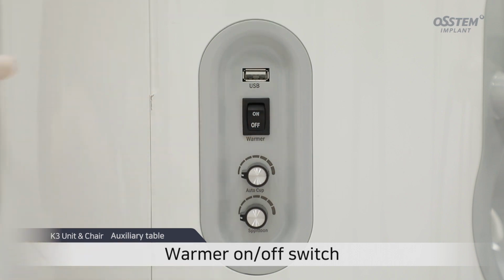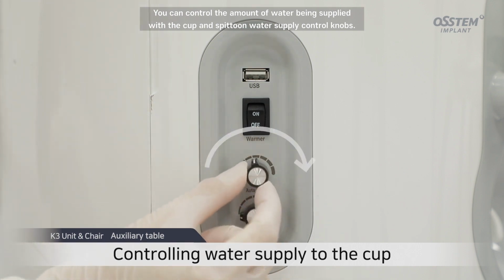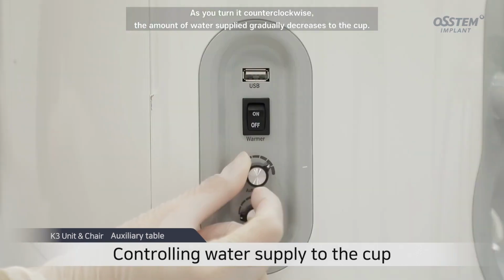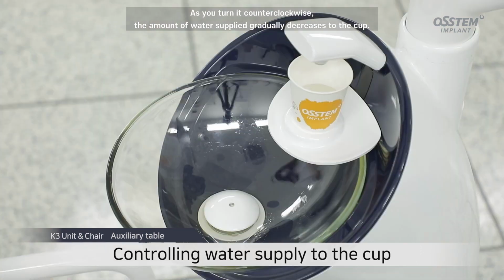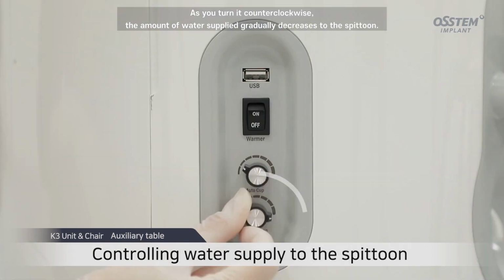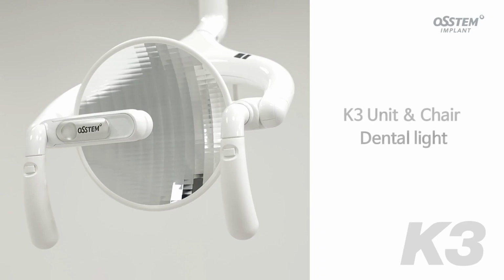of warm water. You can control the amount of water being supplied with the cup and spittoon water supply control knobs. The more you turn it clockwise, the greater the volume of water that will be supplied. As you turn it counterclockwise, the amount of water supplied gradually decreases to the cup. As you turn it clockwise, the amount of water supplied gradually increases to the spittoon. As you turn it counterclockwise, the amount of water supplied gradually decreases to the spittoon.